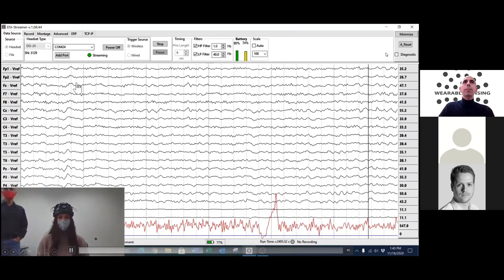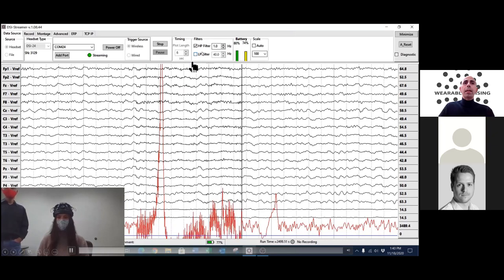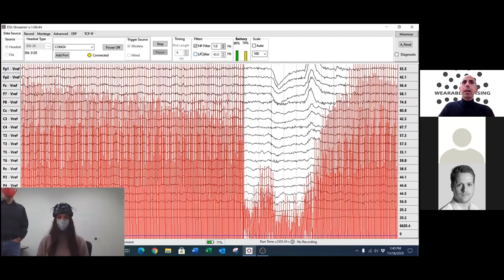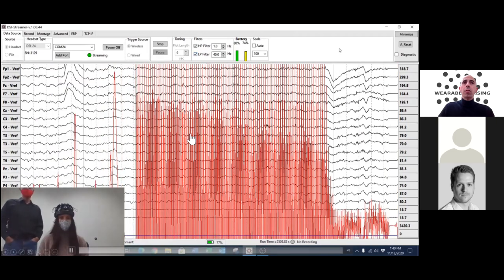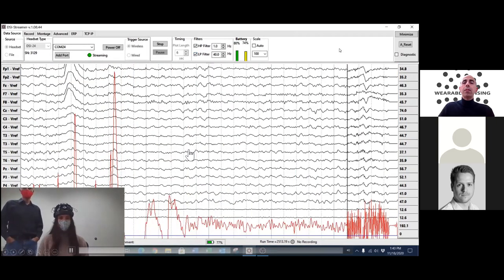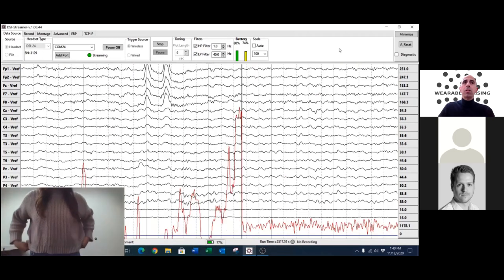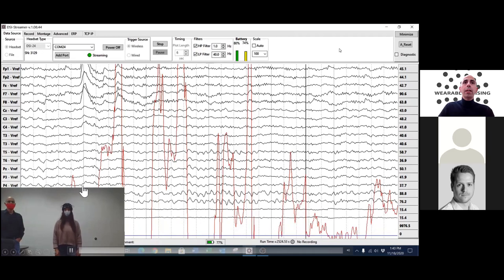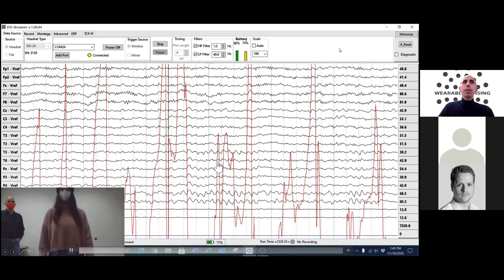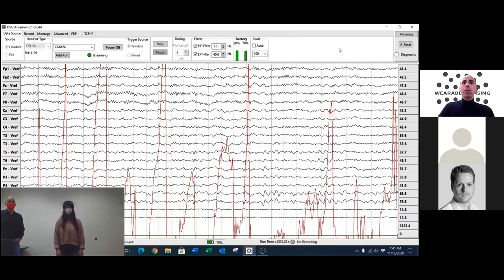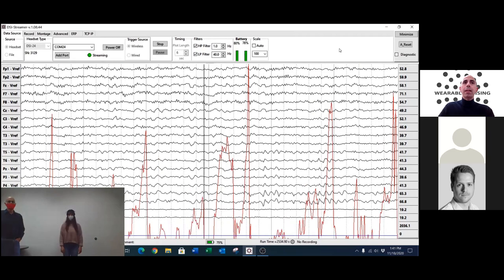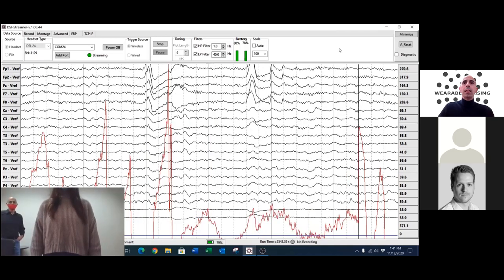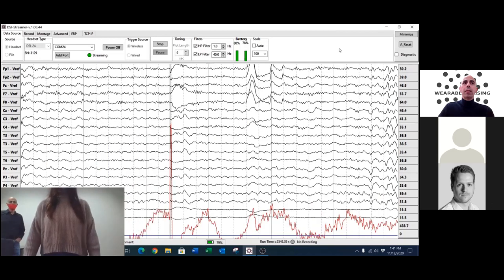Removing the low-pass filter, she places her foot on an electrical cable shielded with rubber. You can see a huge 60 Hz pickup on the red channel, but nothing in EEG. Now she is walking — you can see footstep artifacts in red creating large triboelectric discharges, yet nothing appears in the EEG signal. It's a clean EEG signal while she's walking and moving her arms. Please note: no artifact removal algorithms were used here, just mechanical and electrical design.